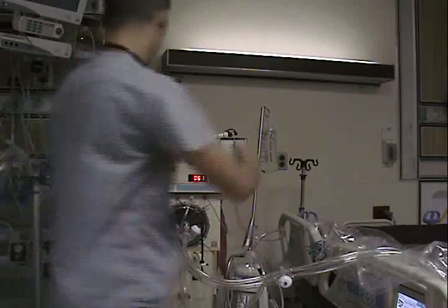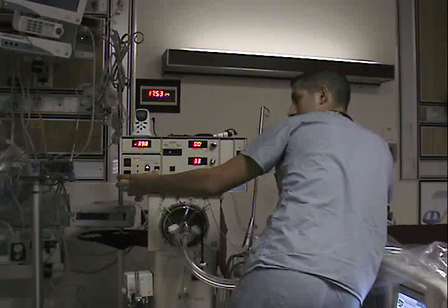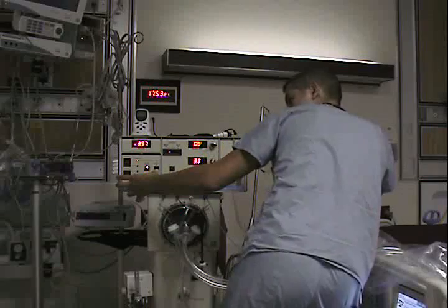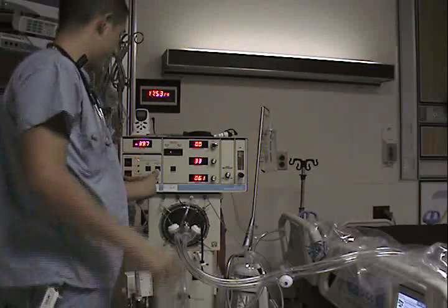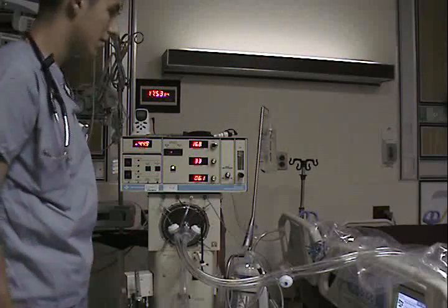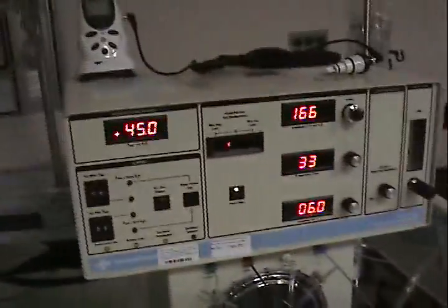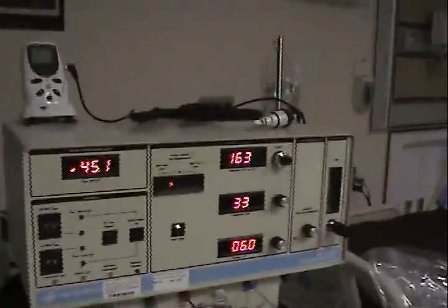It's within 39, so you can just adjust a little bit. Now that the circuit is pressurized, it's ready to oscillate. The circuit is oscillating at 6 Hz. The piston right here is not centered, but it doesn't need to be because it's a 3100B. Getting airway pressure up to 45 — this would definitely come down a little bit.